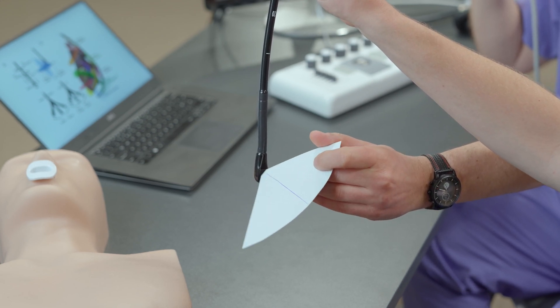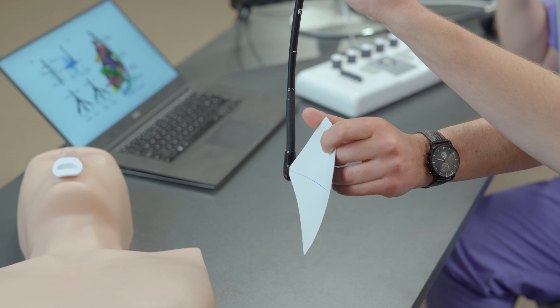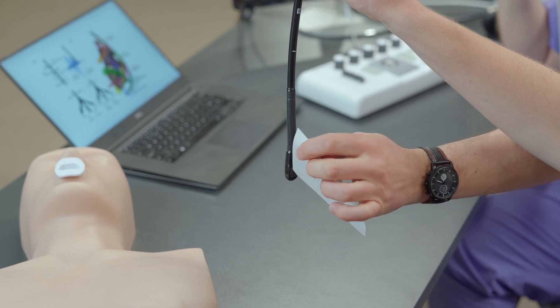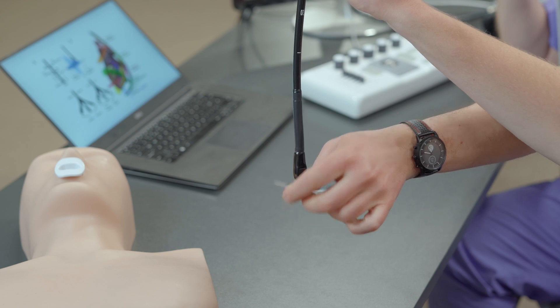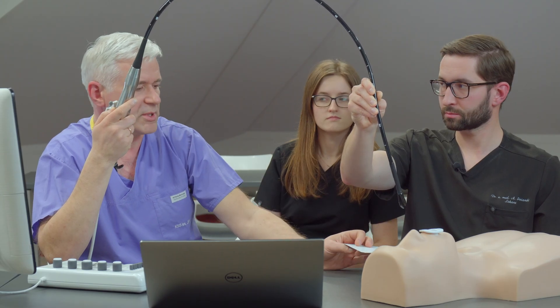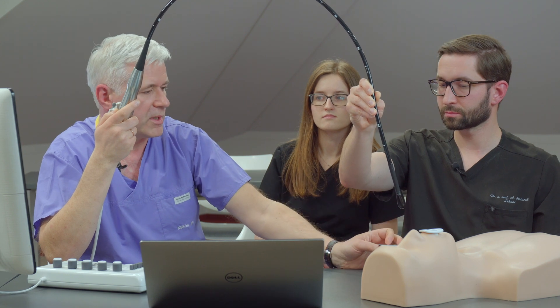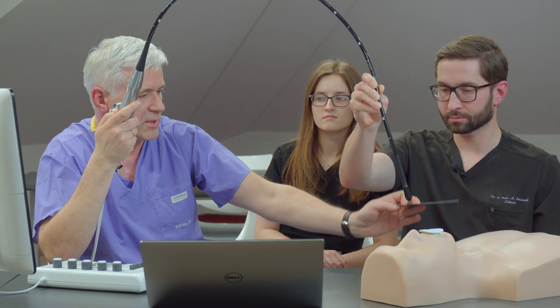You can rotate it by different angles from zero to 90 and then 130, 150, and finally 180 degrees and back. This is very important because it will change a lot the view that you're going to see.